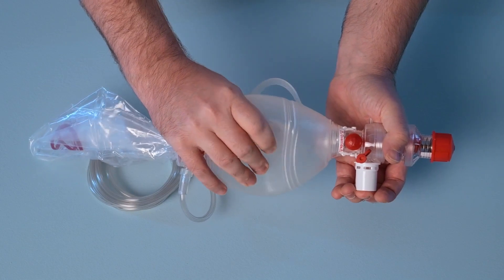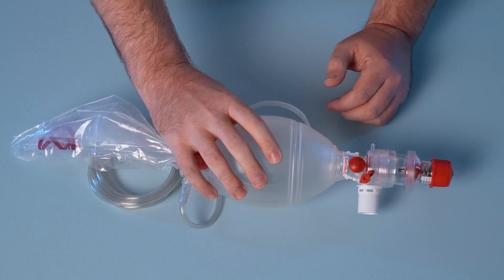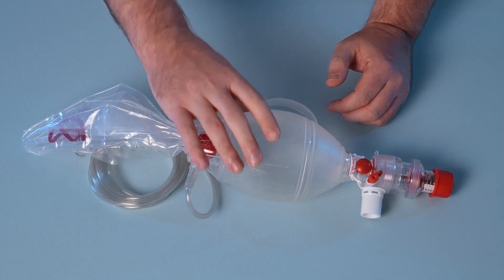Squeeze and release the product several times to ensure suitable functionality of the valve system and listen for the audible feedback of the valve disc releasing.